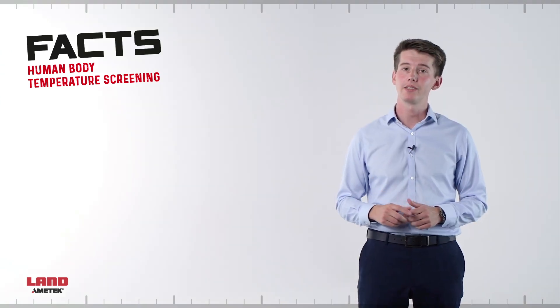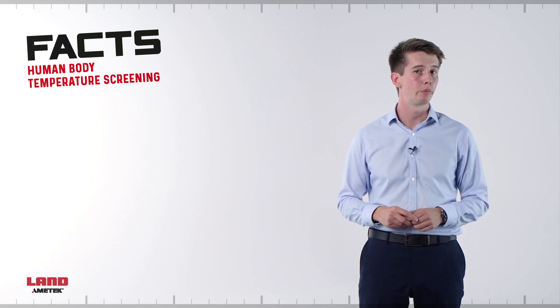If a suitably designed system is incorporated with a suitable process, it delivers rapid accurate screening. Used to complement other virus safety precautions, this form of temperature screening is a very useful countermeasure that can help increase the confidence of those visiting your site.